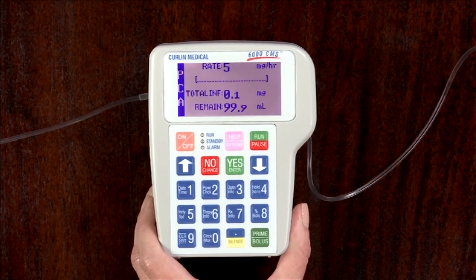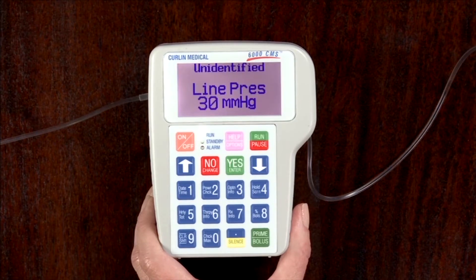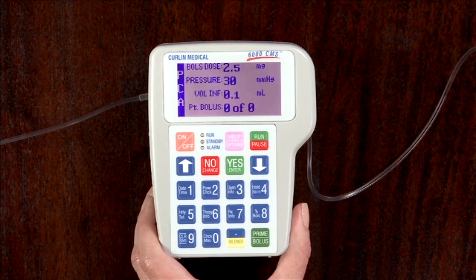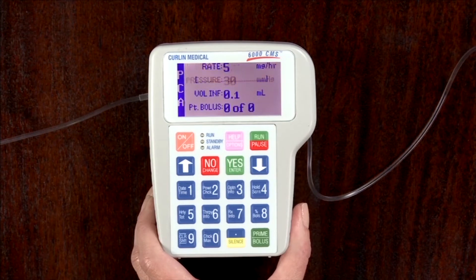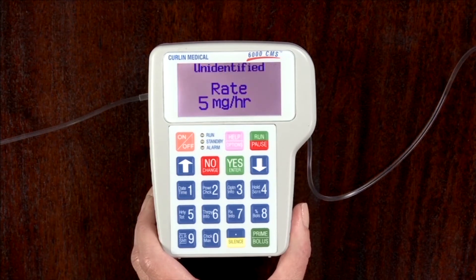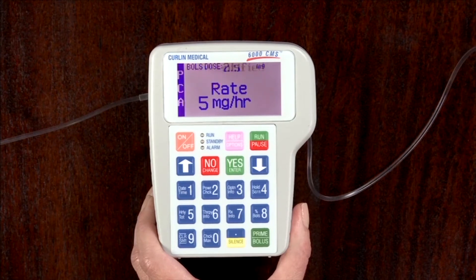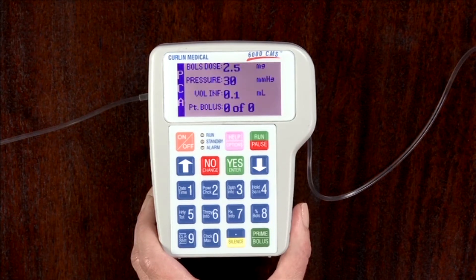The information requested will be displayed for several seconds. Some information will remain on the screen longer so that recording the data is possible. When the timeout period lapses, the screen will then return to displaying information pertaining to the current infusion bag hanging.